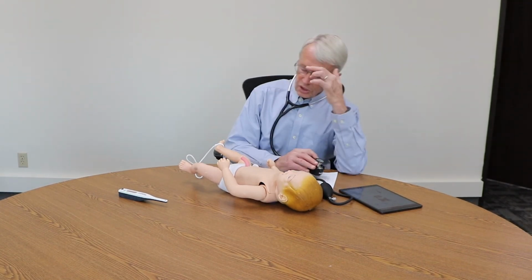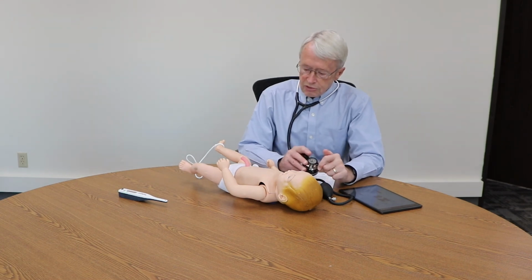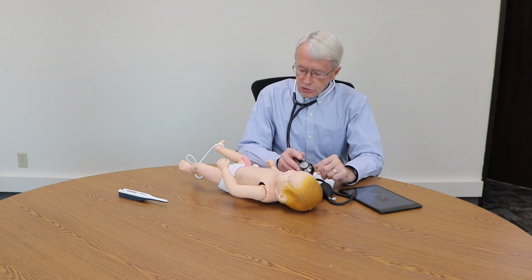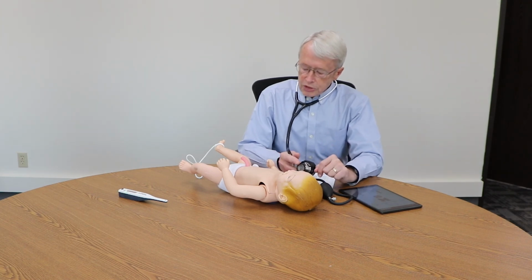So basically what we've seen is a baby whose blood pressure is slightly high, his pulse is high because of the infection, has sounds of a pneumonia, and is slightly down in terms of oxygenation, but otherwise looks stable.